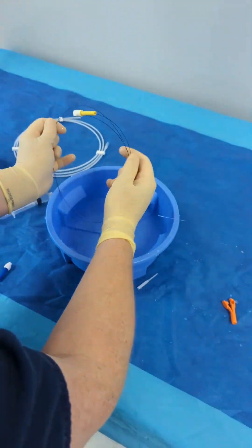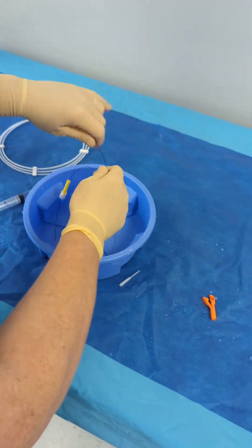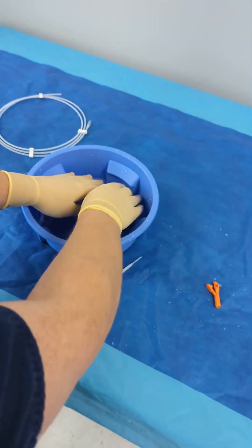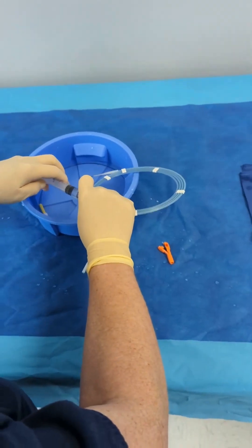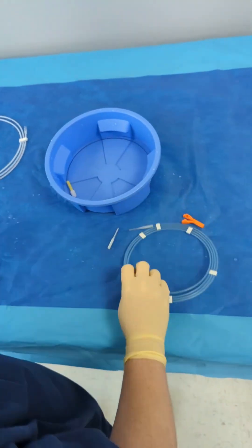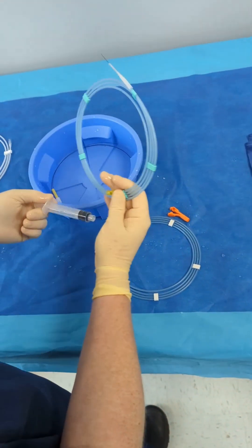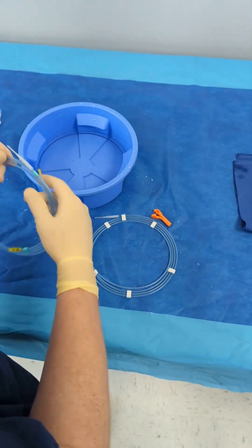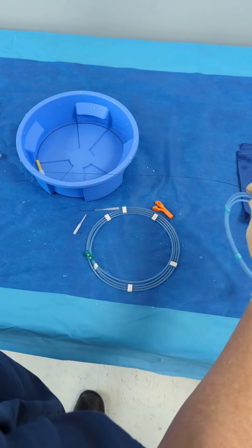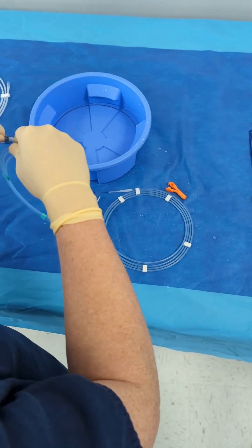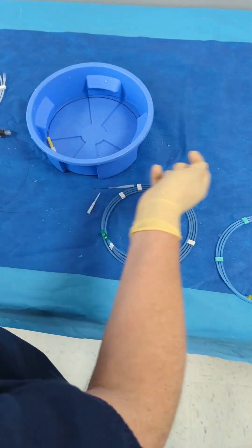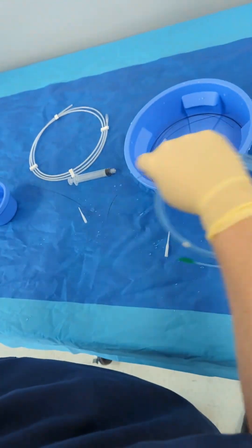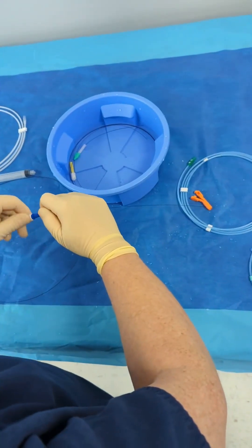And so if I get multiple wires in here, this one is an Asahi Meister wire from Terumo. These were just what I had demoed. I left my fathom at home, but I talked about the wires are color-coded, so I know that Terumo is green. This isn't the Meister yellow but it's pretty close and we'll pretend like this is a fathom.